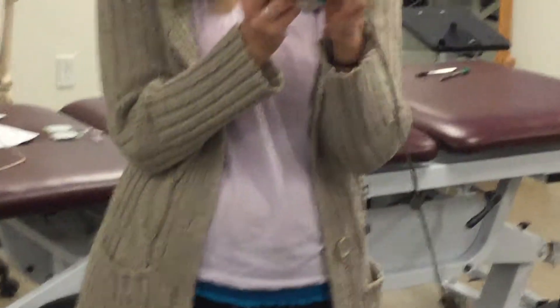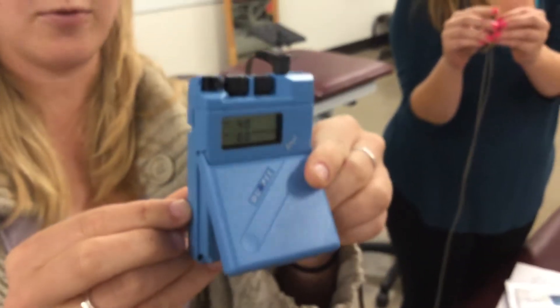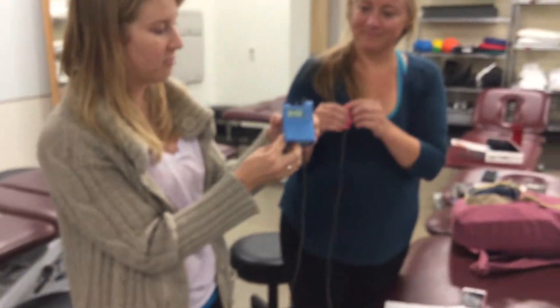It'll show up and say 40 or 80 on the machine to start with. There are little arrows that say 'dose.' So you have little arrows and it says 40 — if you wanted to change it, you can just go up or down, whatever you need.